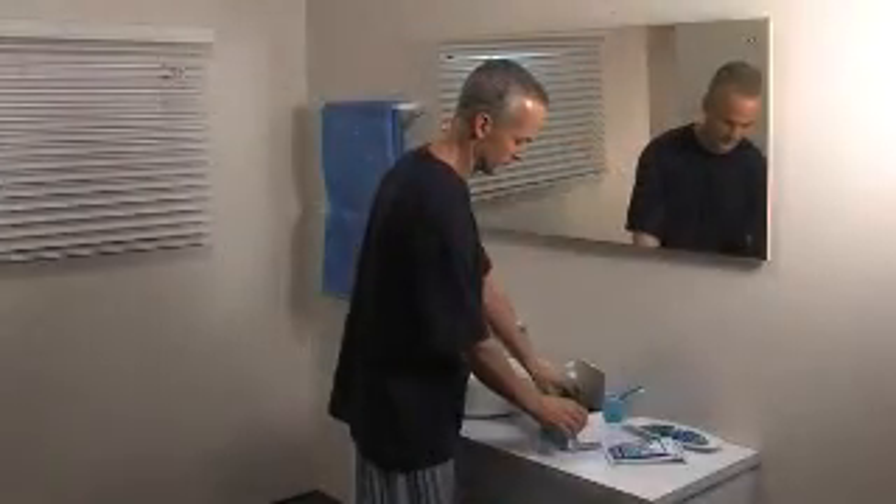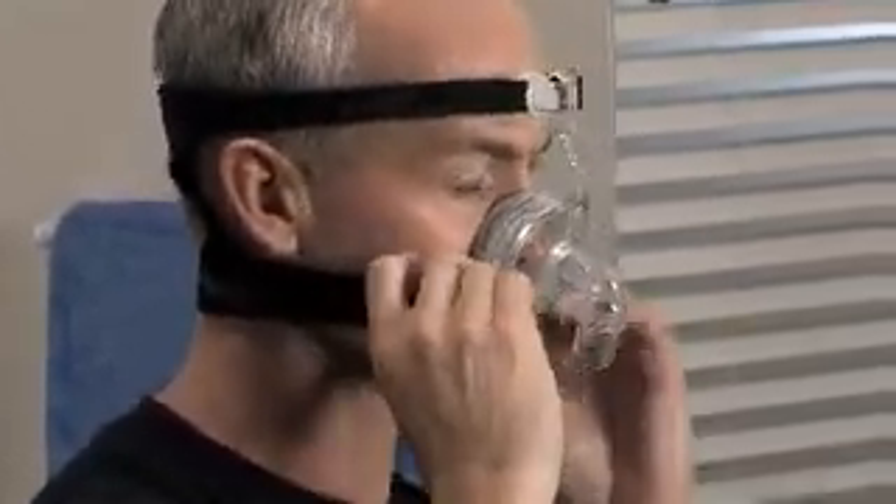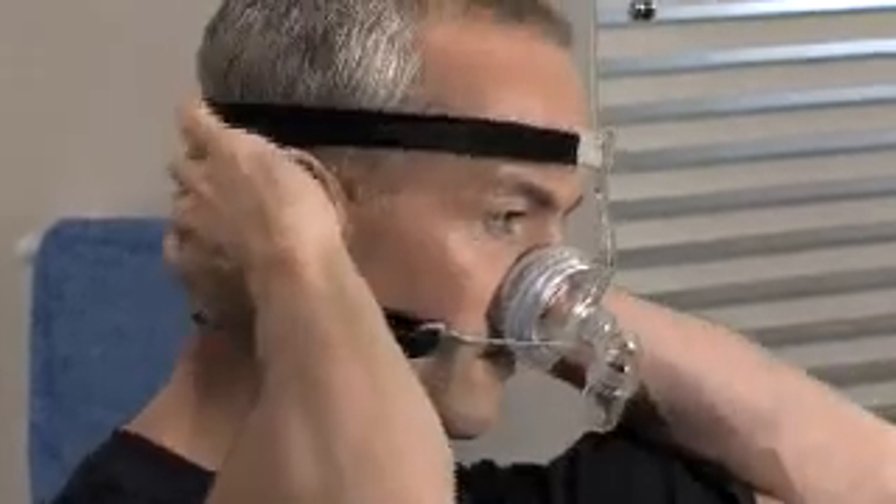Your mask comes assembled ready to use. It comes with a range of fit and forget features including a glider strap with clip for one-step removal of headgear, and a highly contoured easy-clip silicon seal for effortless use and performance.